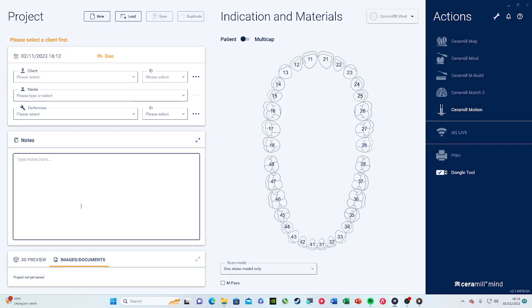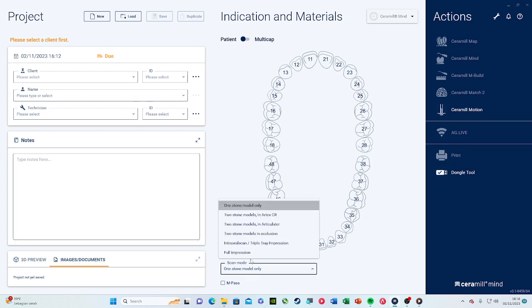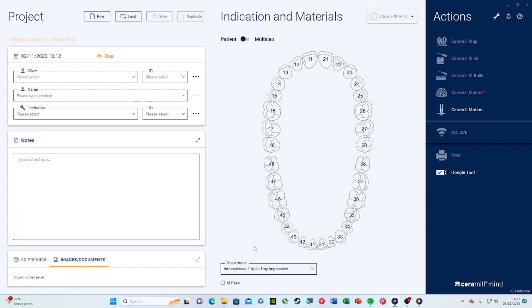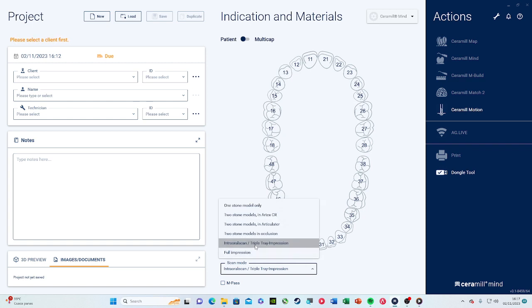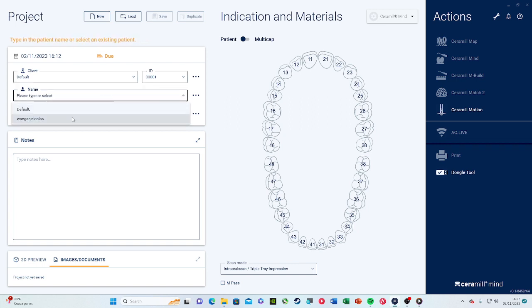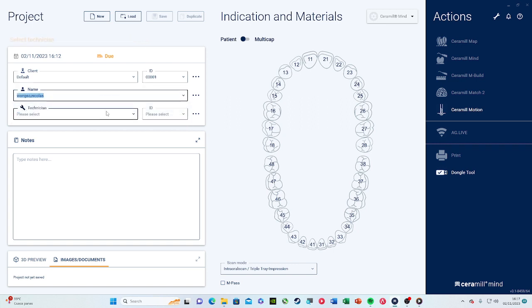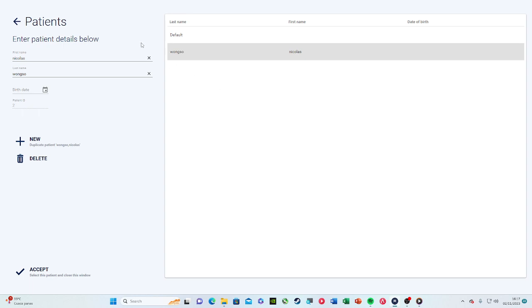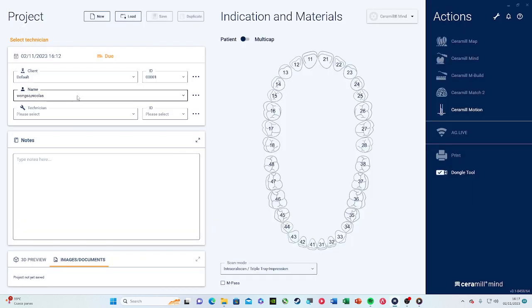Here you see there is scan mode, and in order to import the intraoral scan we have to use the intraoral scan file — that's important because they have the workflow of how to import it. We choose our client, and here we can just use default, and for the name we can use what's already there.